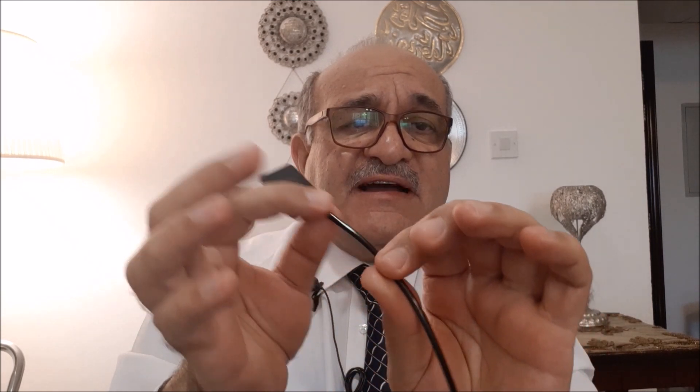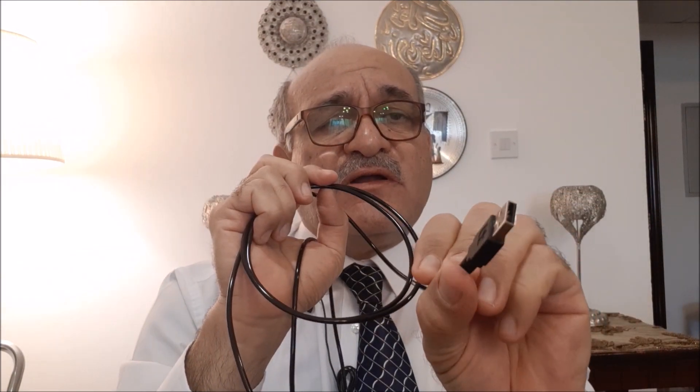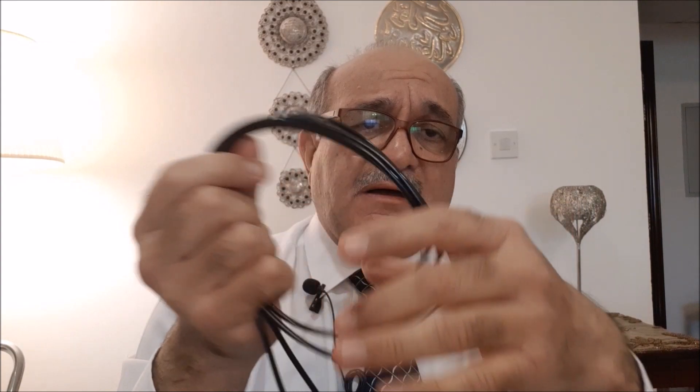The sensor placed inside the oral cavity is attached to a cable, usually around one meter in length, and it ends with a regular USB connector that you connect to your laptop or desktop. It comes with a disk containing the driver to install and operate it on your computer, so that the images registered on the sensor will be seen on your computer. These differ according to the manufacturer, but the function and aim are the same.